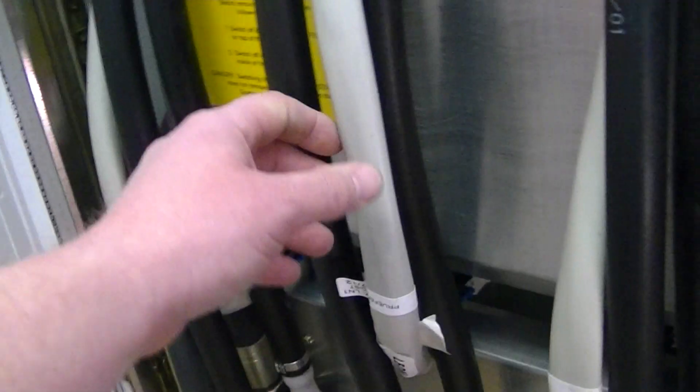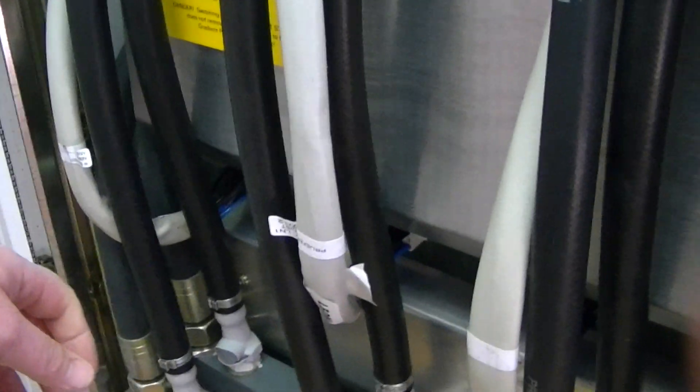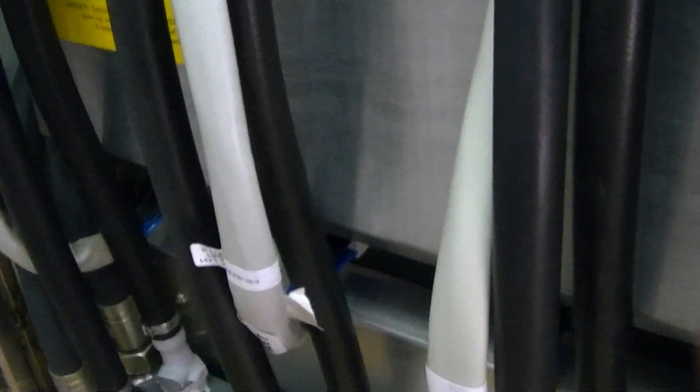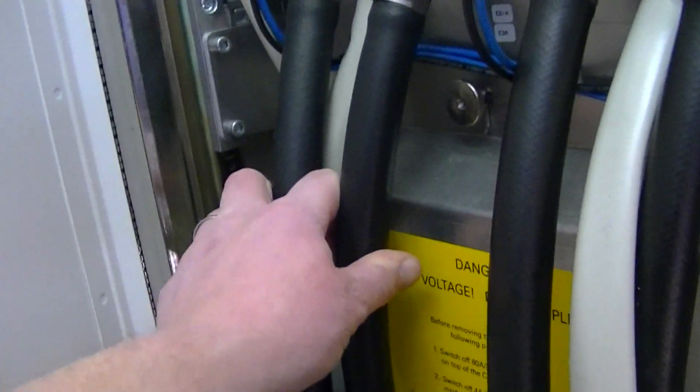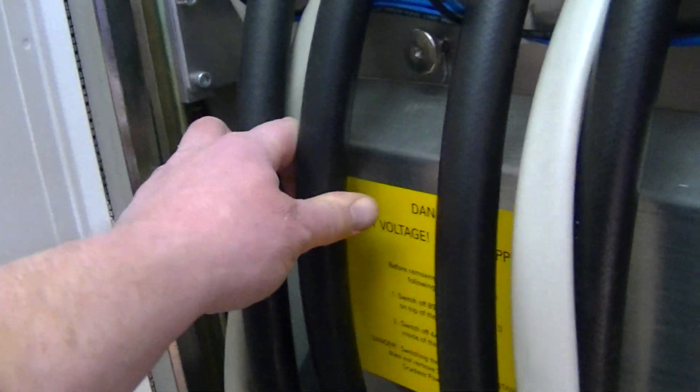And you can see here, this is the output of the D32 and the output of the D32 goes directly to the gradient amplifier itself. That's to clean up the power. And then here right here, each gradient amplifier has an input and output for cooling.